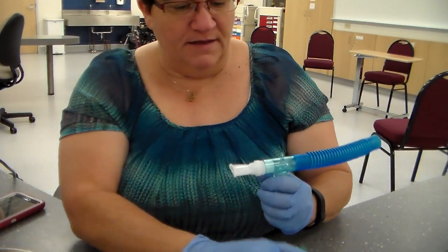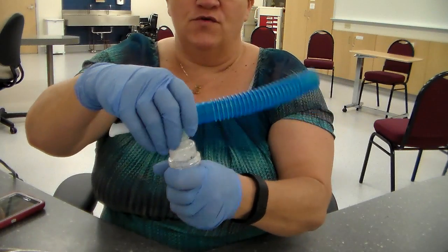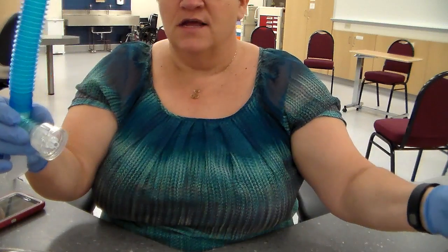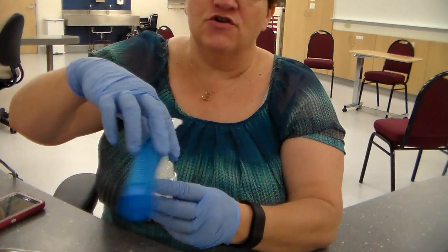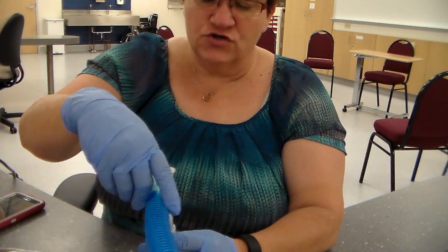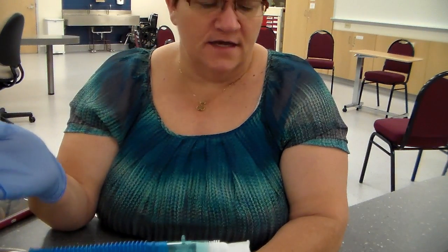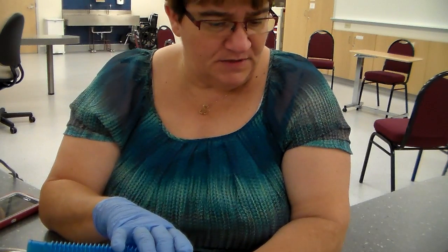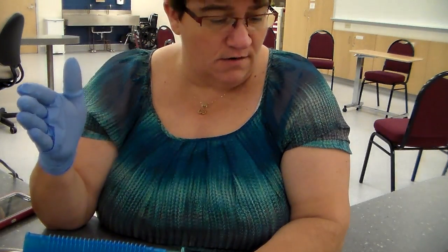If not, you're just going to clean up your supplies, okay? You're going to clean the mouthpiece, okay? Clean this mouthpiece. And then make sure that you rinse out the medication chamber, throw out the medication, you know, little drops that are in there, throw them out, rinse it out, okay? And then you're going to store this in the bag. Usually there's a respiratory bag beside the bed or in the drawer beside the bed. And that's where you're going to keep all of their respiratory supplies, okay? You're going to dispose of and replace any components according to agency policy. So know what your agency policies are, okay?